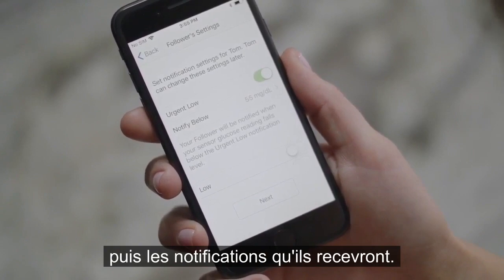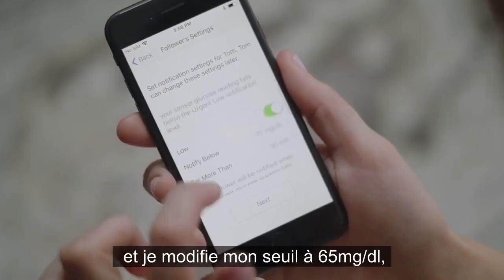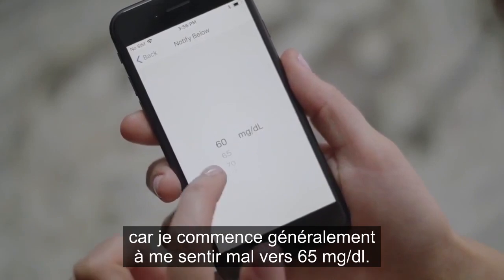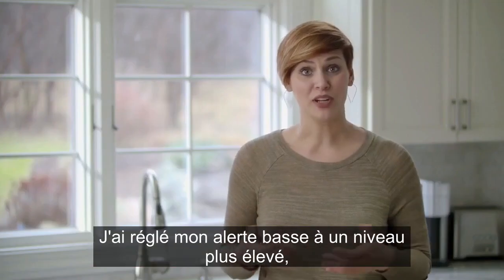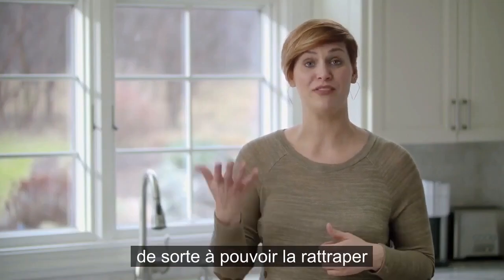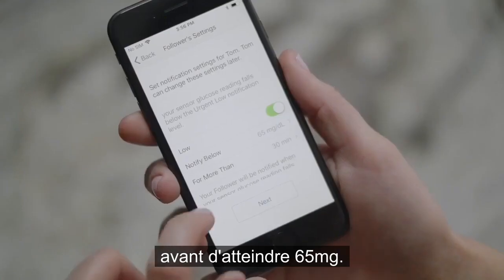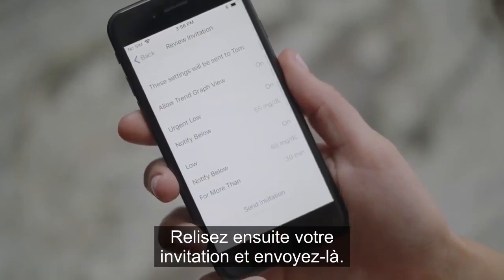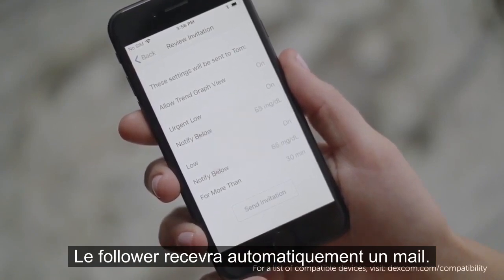I'm going to leave Urgent Low on, and then change my Low to 65, because I usually start to feel low around 65. I set my low alert higher so I should catch my low before I hit 65. Then review your invitation and send it. This will trigger an email that is sent to your follower.